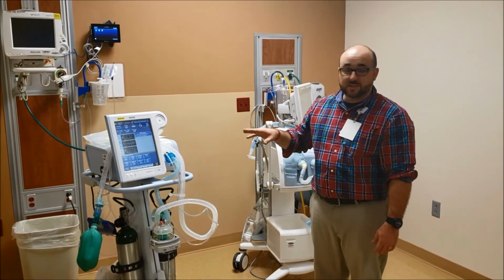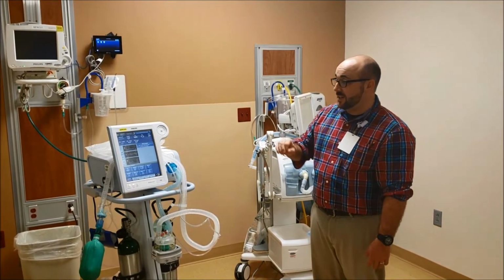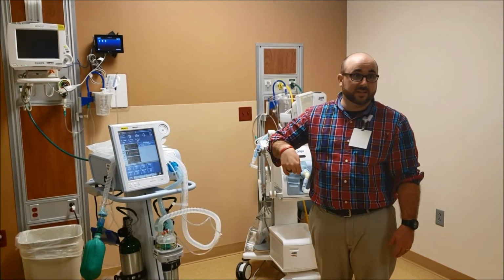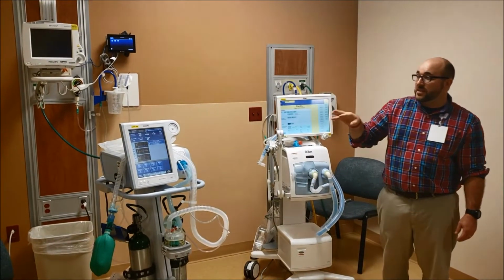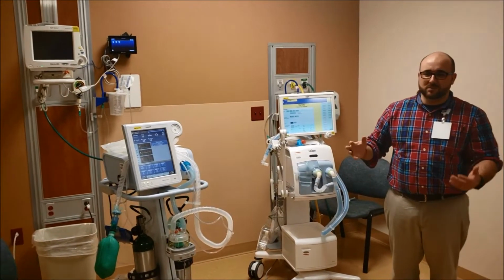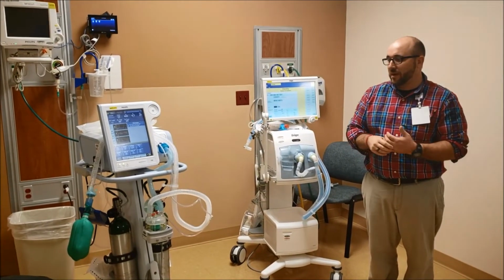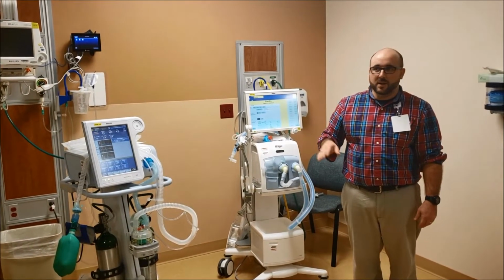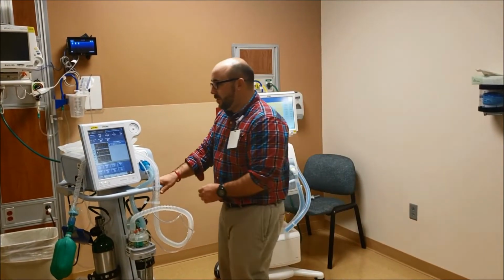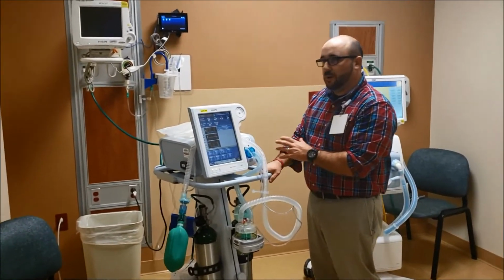A lot of places use these as ventilators. So I would really like to try to transition to use this as the vent down here. Now that's kind of scary because you have to really use this thing, and it works really well. But this has a really cool mode on it, and so we're gonna probably over a few months or so, hopefully if I can keep it in the forefront of my mind, keep talking about using this because it works great as a ventilator.